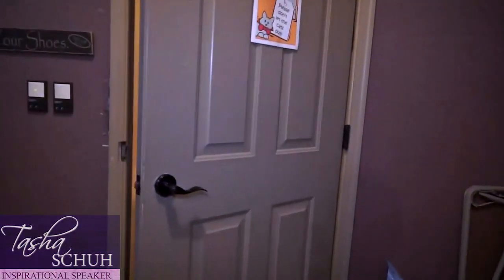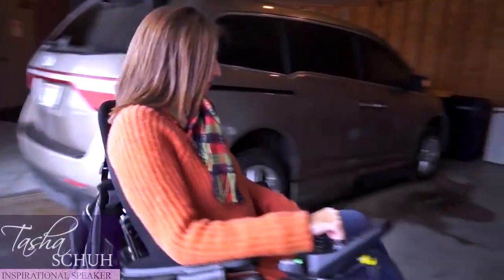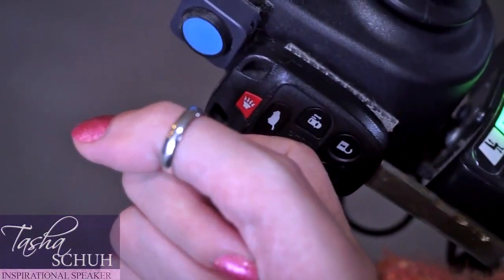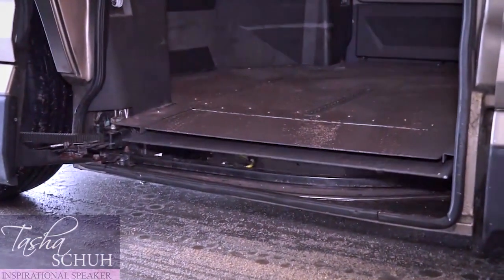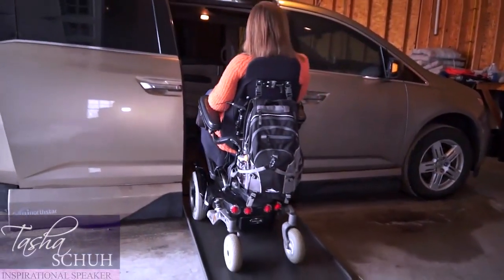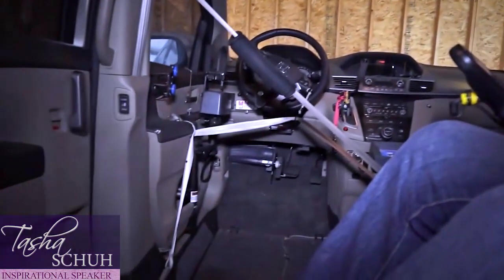It closes right behind me as you will see. I have all of my remotes velcroed right onto my wheelchair so I don't have to worry about dropping them or forgetting them — I always have them with me. So what I do is I push this button on my remote. When that ramp came out, my whole van lowers so that it makes it less steep for me to have to go up in my wheelchair. Here I am entering my van and as you see there's no seat in the driver's spot.